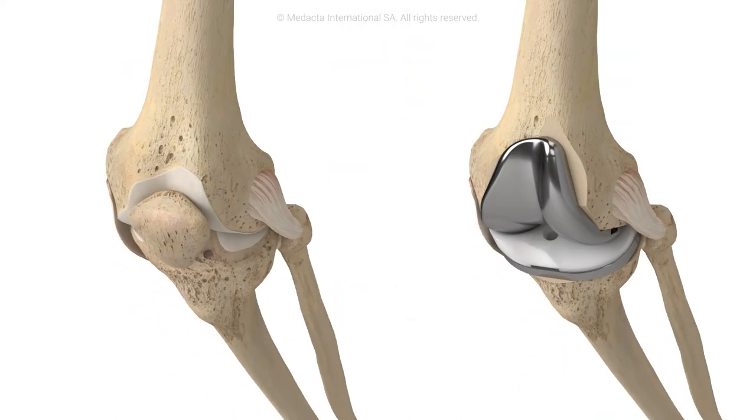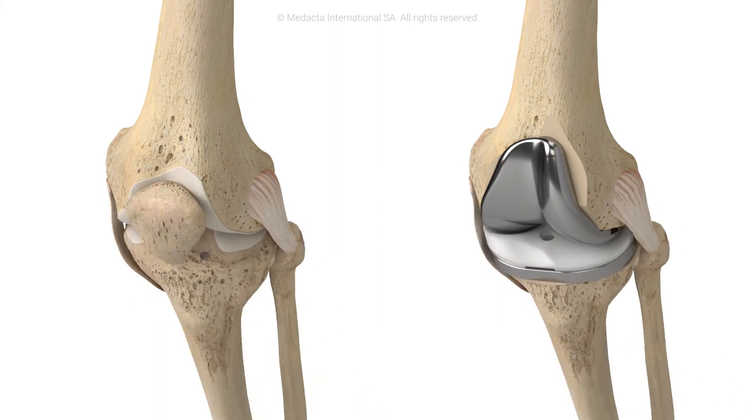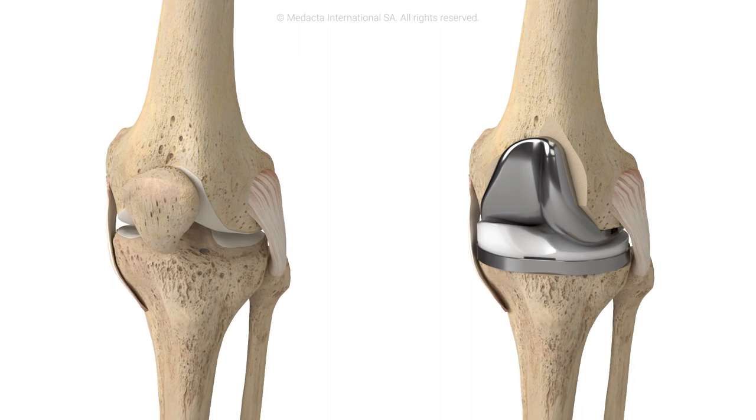Combined with the unique design features of the GMK sphere medially stabilized knee, kinematic alignment allows restoration of the normal native knee kinematics.